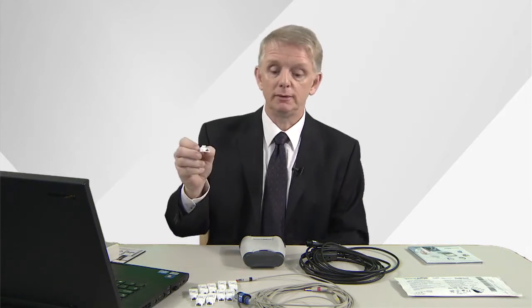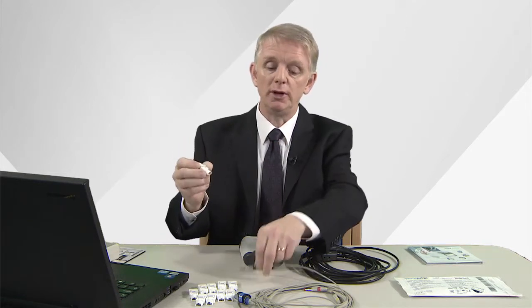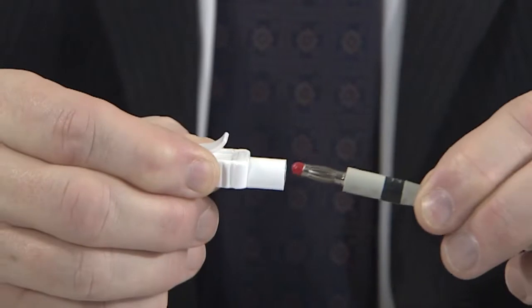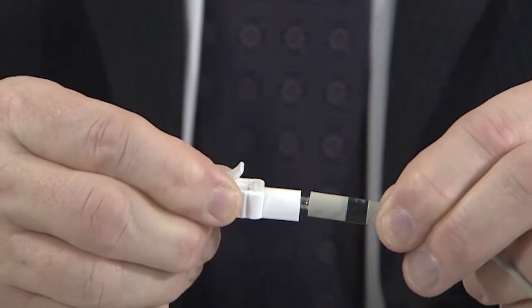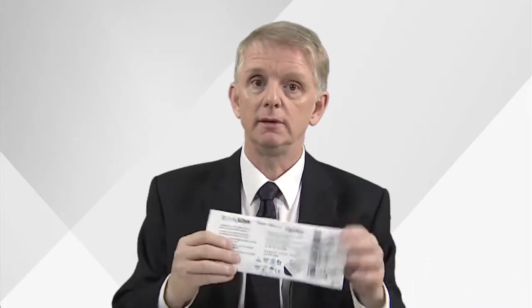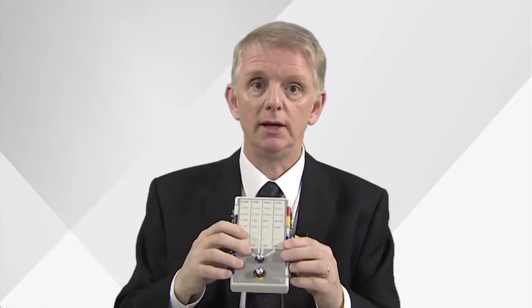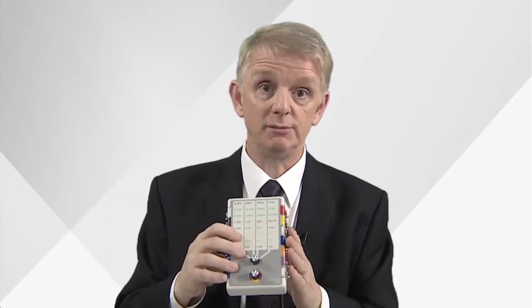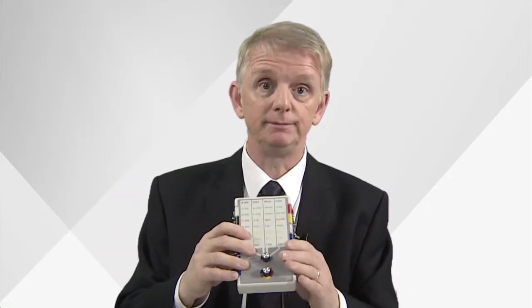There's a crocodile clip, one to go on each end of the patient cable, and finally a starter pack of ECG electrodes. But for the purposes of today's demonstration I'm going to be using an ECG simulator. This isn't part of the kit.